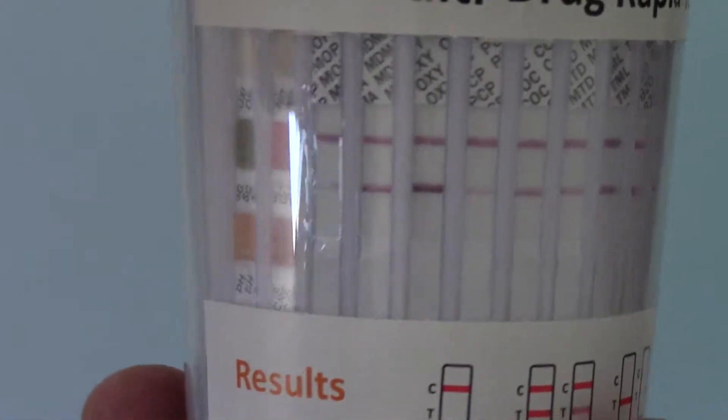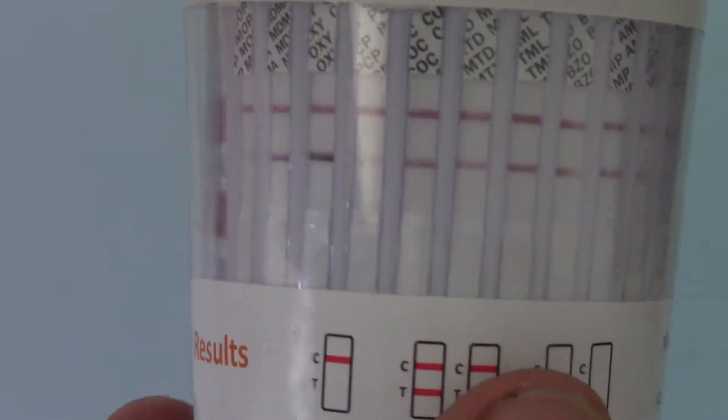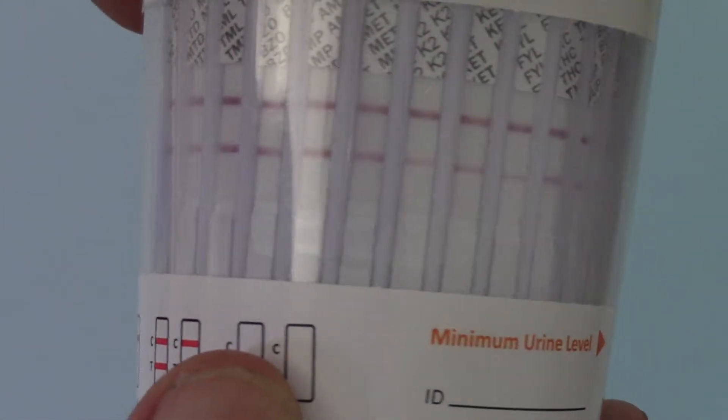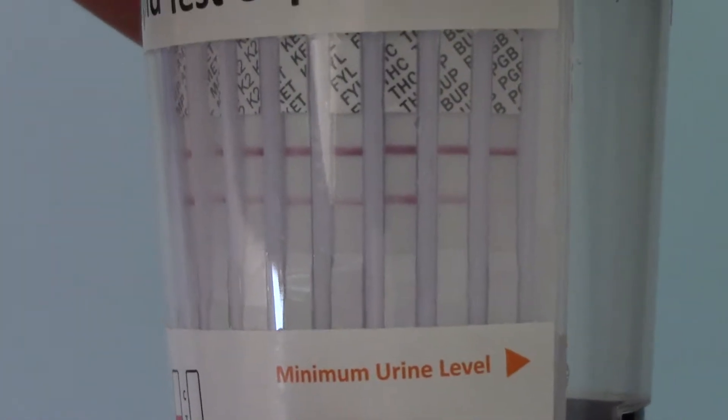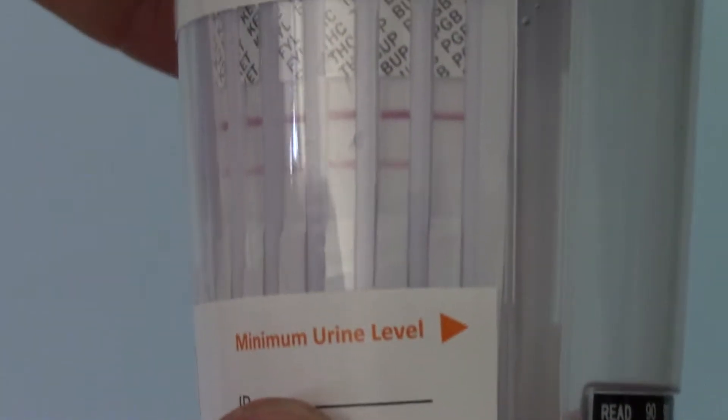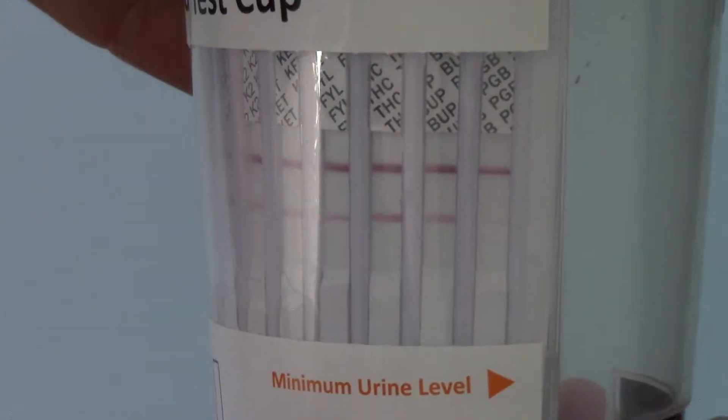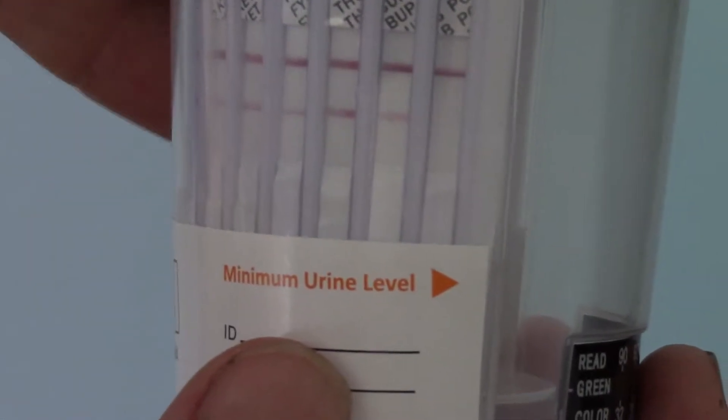Now what you must not try and do is interpret anything from the colour density, thickness of the test line at all. If it is there, if it's thin and it's faint at the read time, it is a negative result.